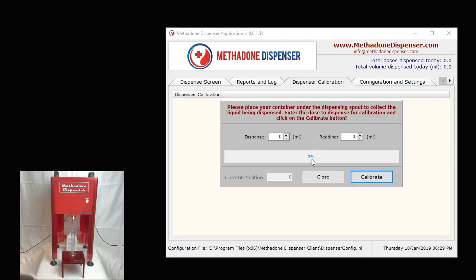Now, when you click on this button, there are two data points that need to be provided. The first data point is how much would you like to dispense as part of this calibration routine. What I'm going to do is choose a small number, such as dispense 10 ml of volume of the liquid.